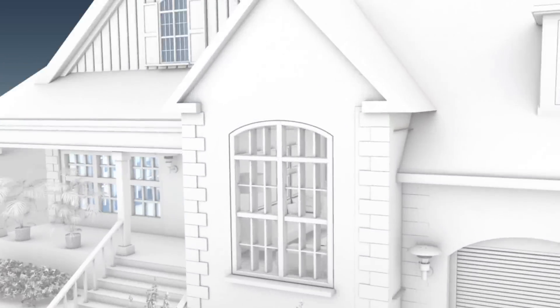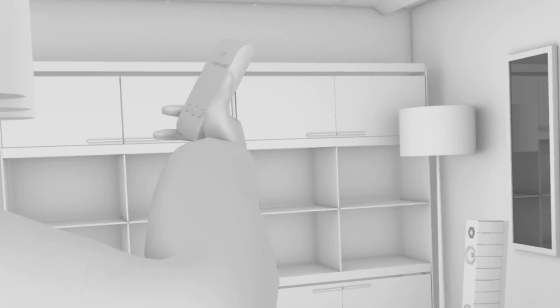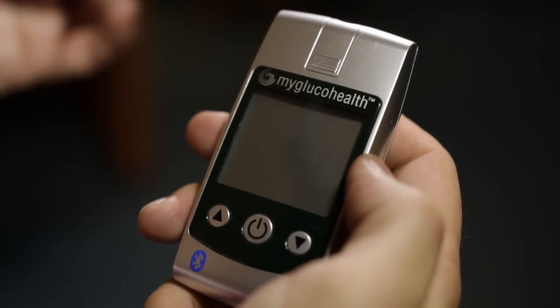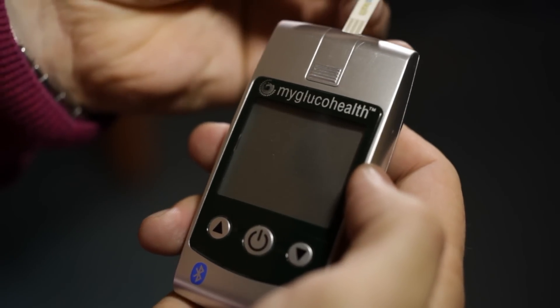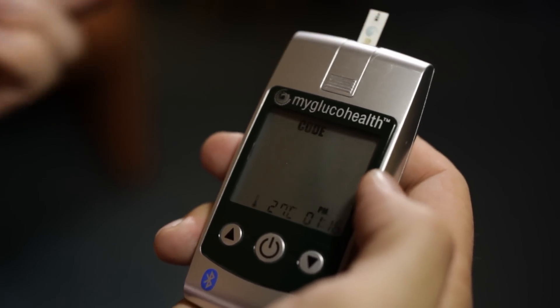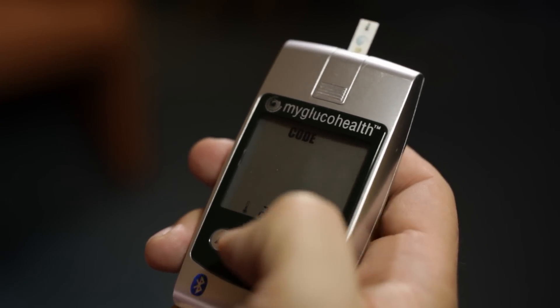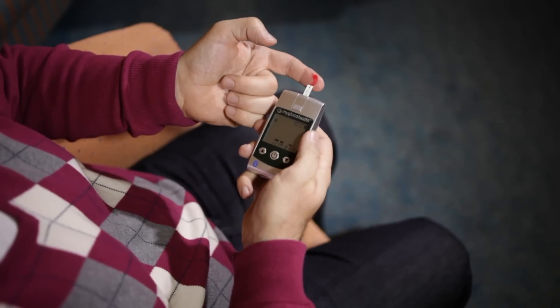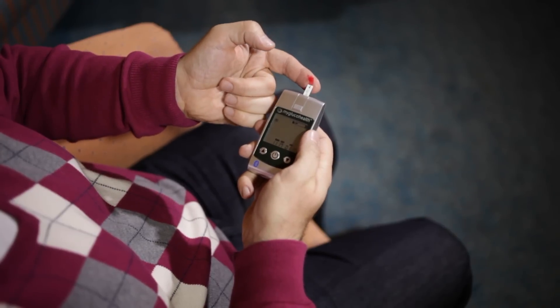While in-home patients have used blood glucose monitors for years, now these diagnostic devices can do much more. The information collected by the glucose monitor is automatically downloaded to the Home Health Hub reference platform, where it is analyzed and the data is presented via an easy-to-use touchscreen device.